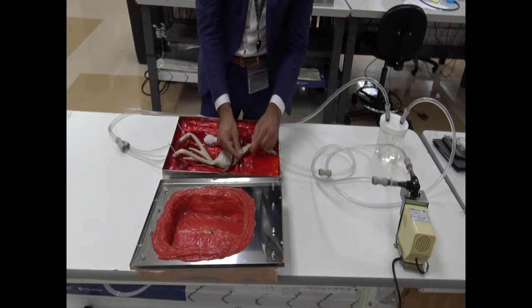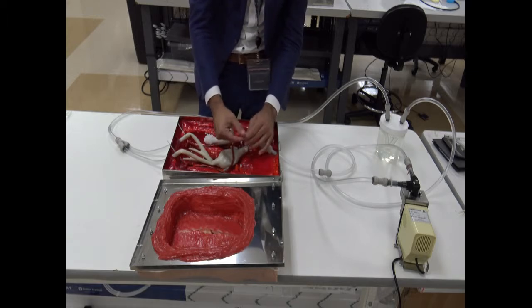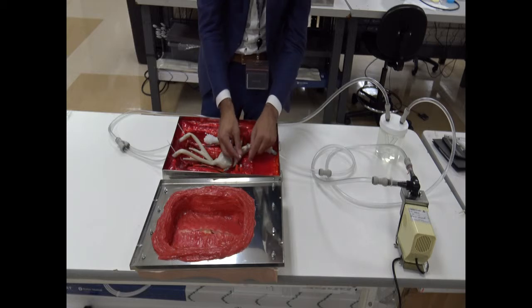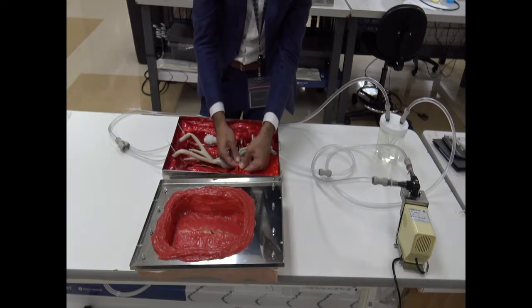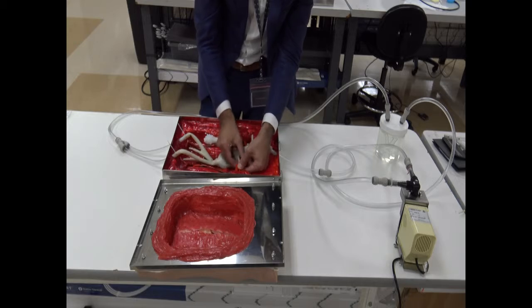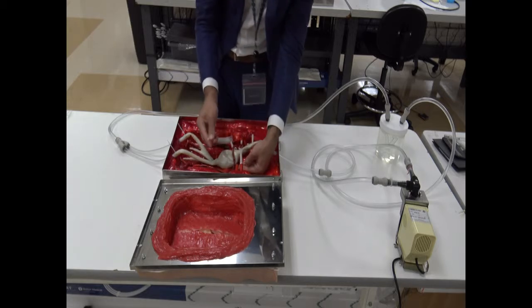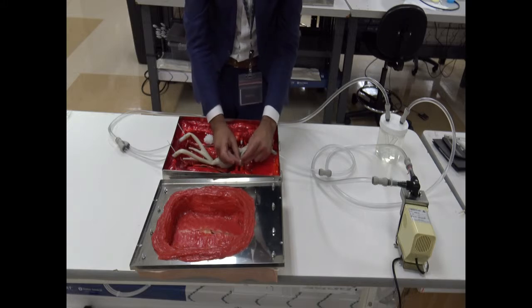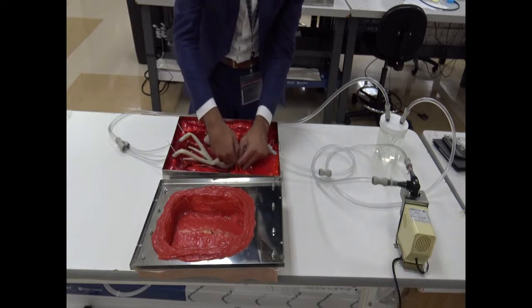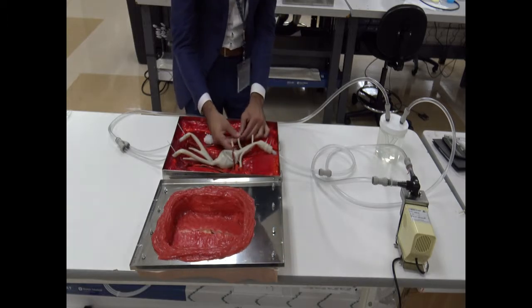All right, so the final thing that we have to do is to connect the two renals. Sometimes you gotta peel off the renals in order to have a clean cut. So once you have the clean cut, introduce the renals inside these adapters that you got on the left side, on both sides. So you push it all the way down, like so, and then once you have done that, tie these renals as well with some zips to make sure that the pressure doesn't blow the model apart. We have done that with the left renal.